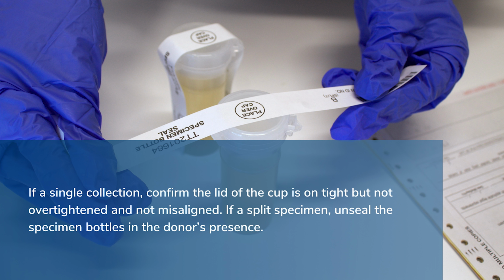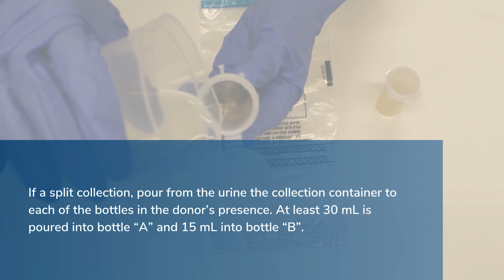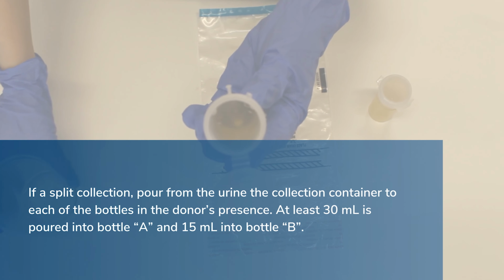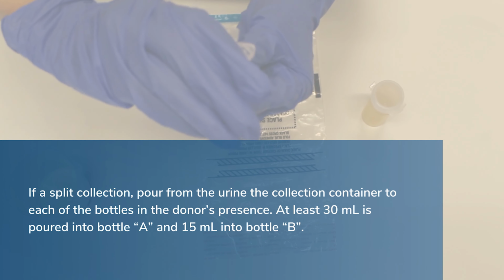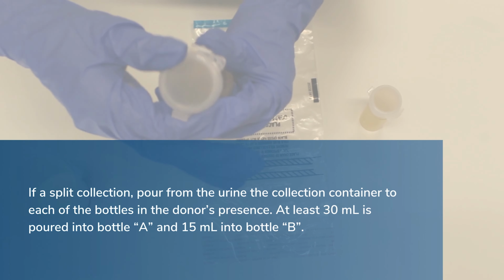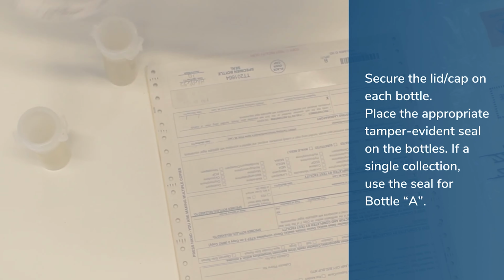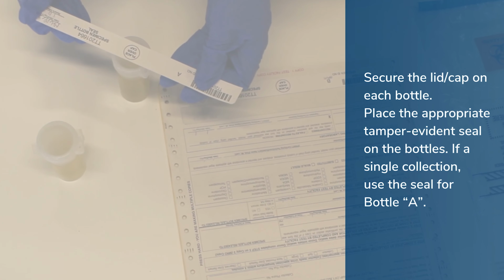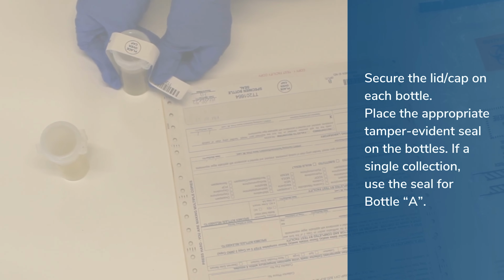If it's a split specimen, unseal the specimen bottles in the donor's presence. If a split collection, pour from the urine collection container to each of the bottles in the donor's presence. At least 30 milliliters is poured into bottle A and 15 milliliters into bottle B. Secure the lid or cap on each bottle. Place the appropriate tamper-evident seal on both bottles. If a single collection, use the seal for bottle A.